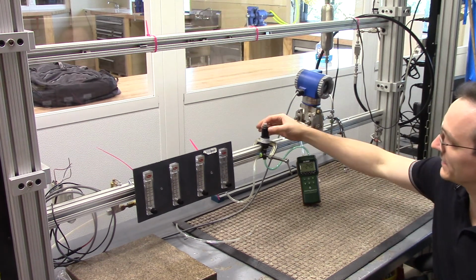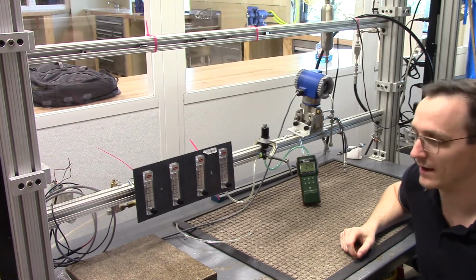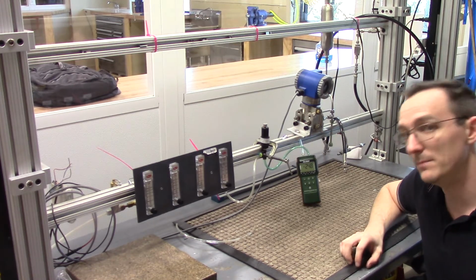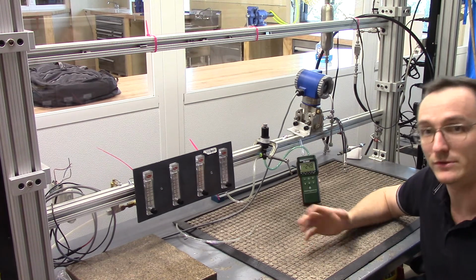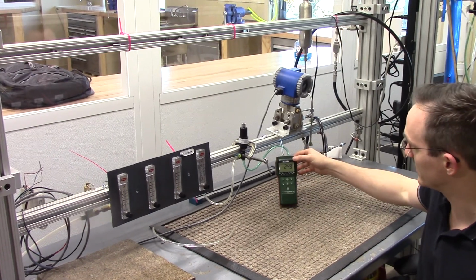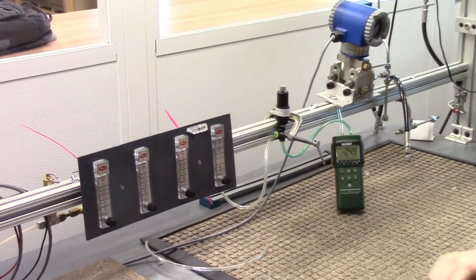Okay, today we're going to demonstrate a PIP or PEEP pilot regulator for a dome-loaded device in a ventilator system. And this one specifically is the PEEP pilot valve, and this will generate a pneumatic signal which can go to a dome-loaded device to control airflow from the patient. Currently we have a pressure transducer displaying pressure controlled by this pilot valve in millibar.